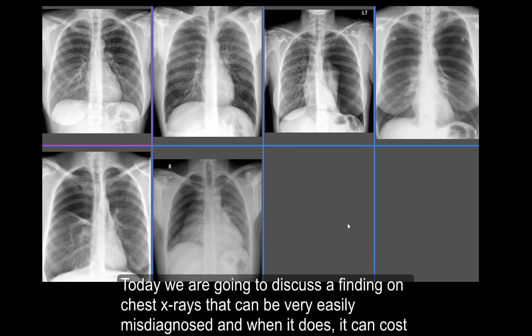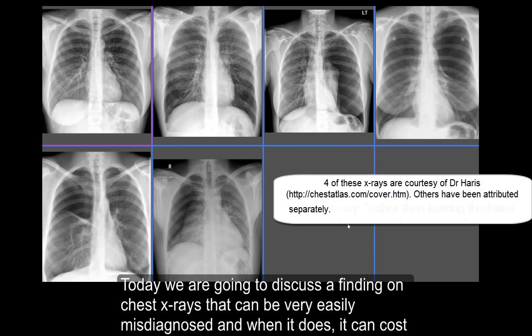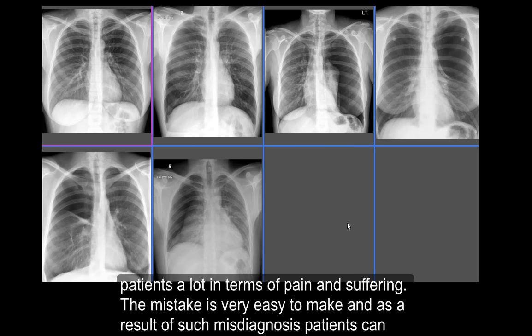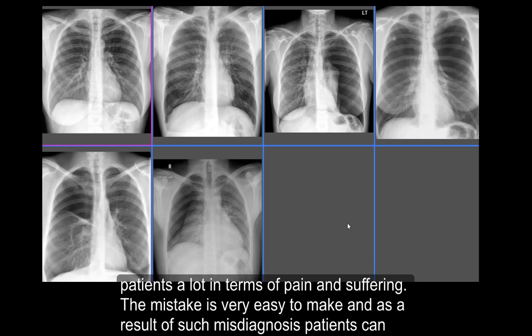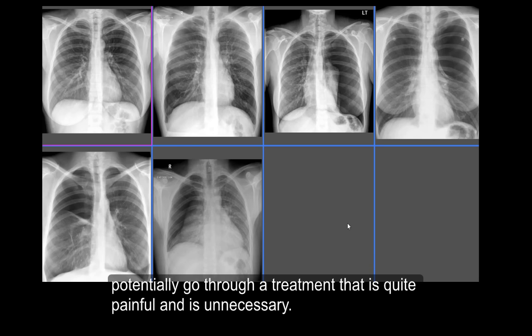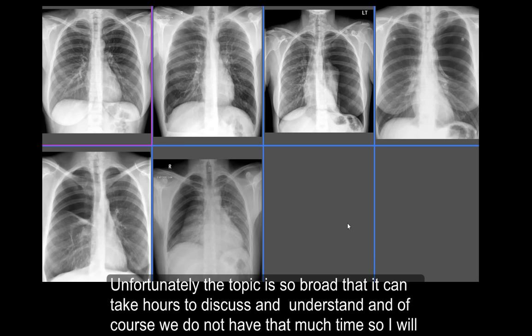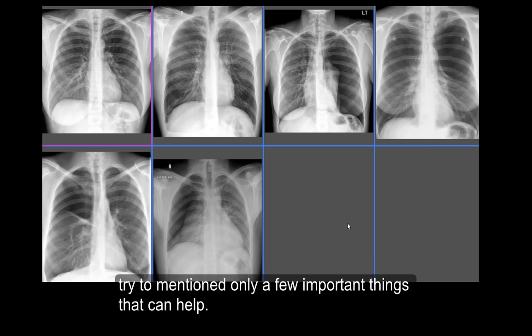Today we are going to discuss a finding on chest X-rays that can be very easily misdiagnosed, and when it does, it can cause patients a lot in terms of pain and suffering. The mistake is very easy to make, and as a result of such misdiagnosis, patients can potentially go through a treatment that is quite painful and unnecessary. Unfortunately the topic is so broad that it can take hours to discuss, so I'll try to mention only a few important things that can help.